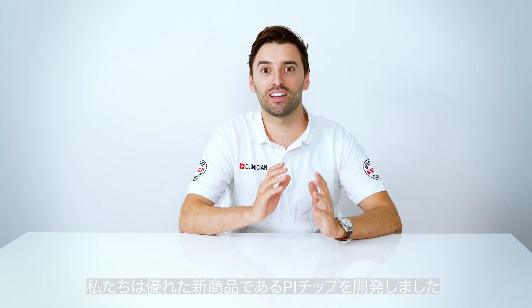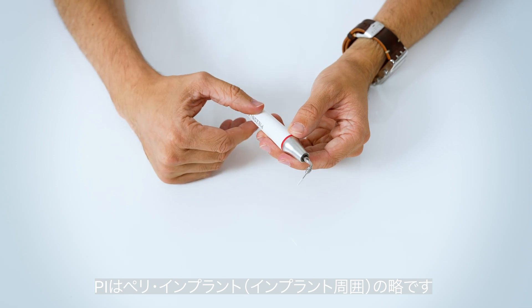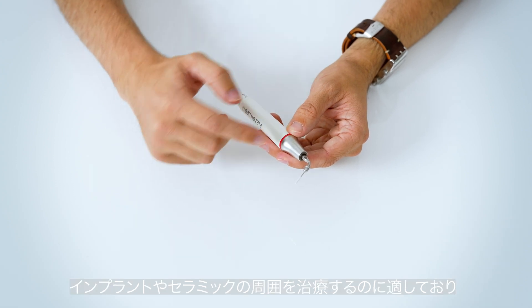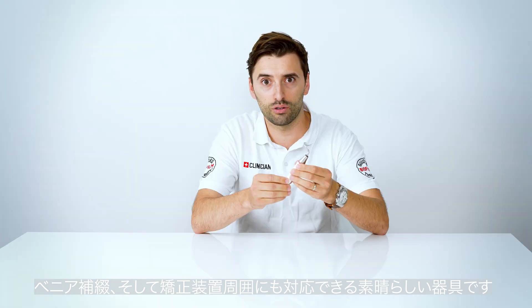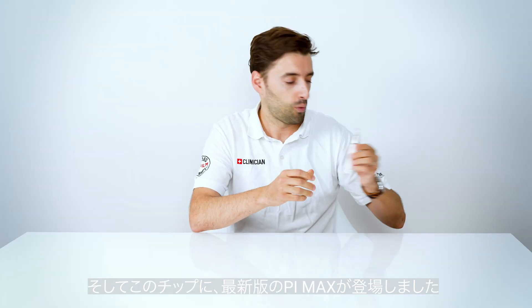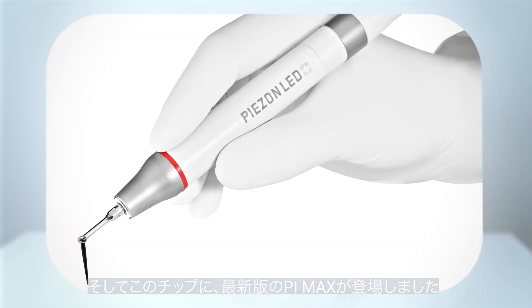Hi guys, I'm Celso De Costa and I'm here today to talk about an excellent new product. As you know, we had our PI instrument — that stands for peri-implant instrument — a PIC instrument to work around implants, crowns, veneers, restorations, and even orthodontic appliances. Today we are changing it for the newest PI: the PI Max.